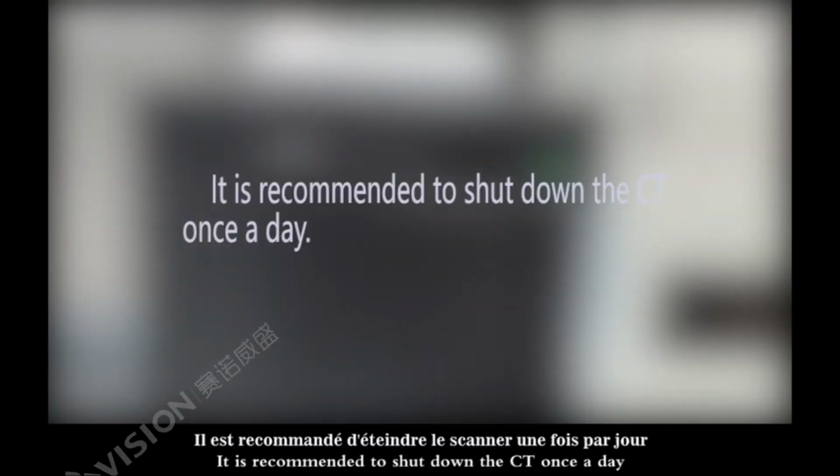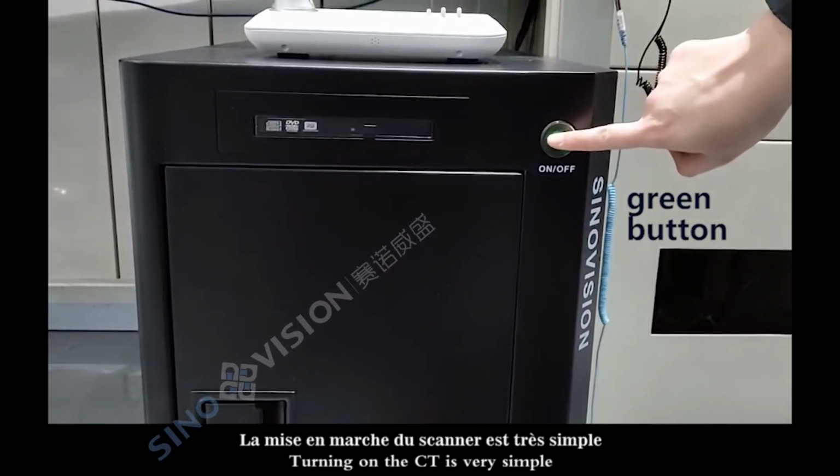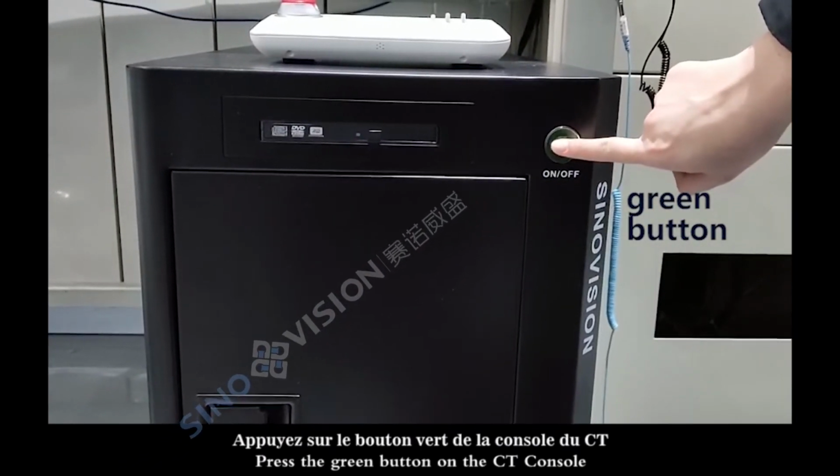It is recommended to shut down the CT once a day. Note that the reboot should be performed 3 minutes after the shutdown. Turning on the CT is very simple. Press the green button on the CT console.